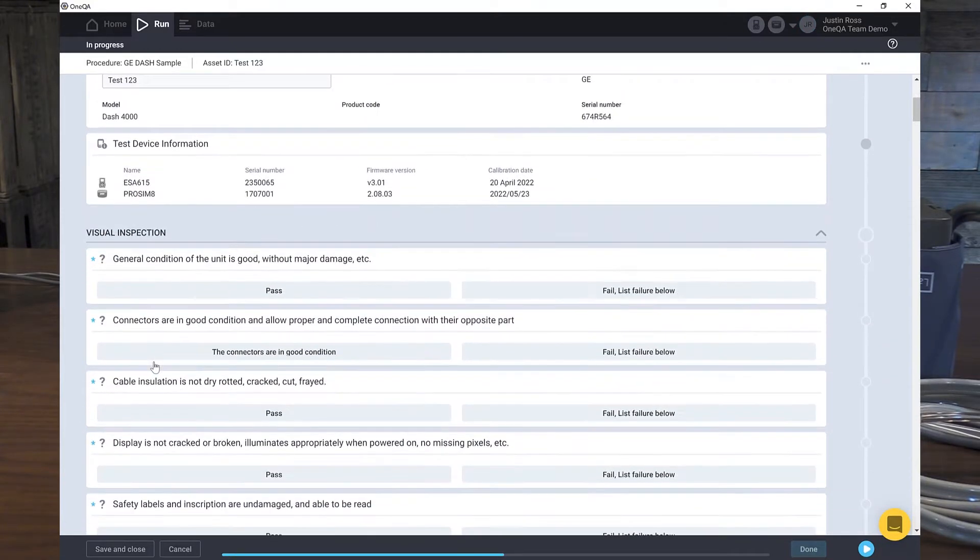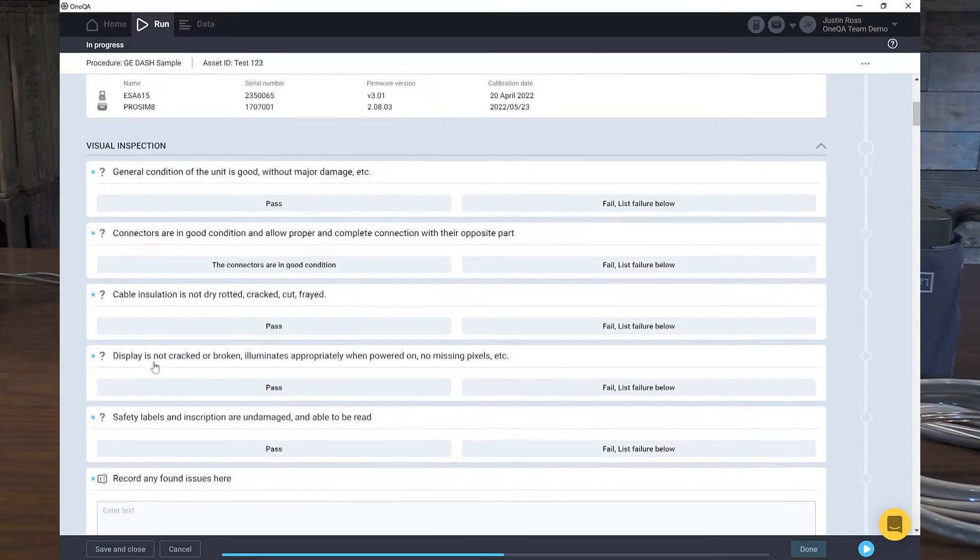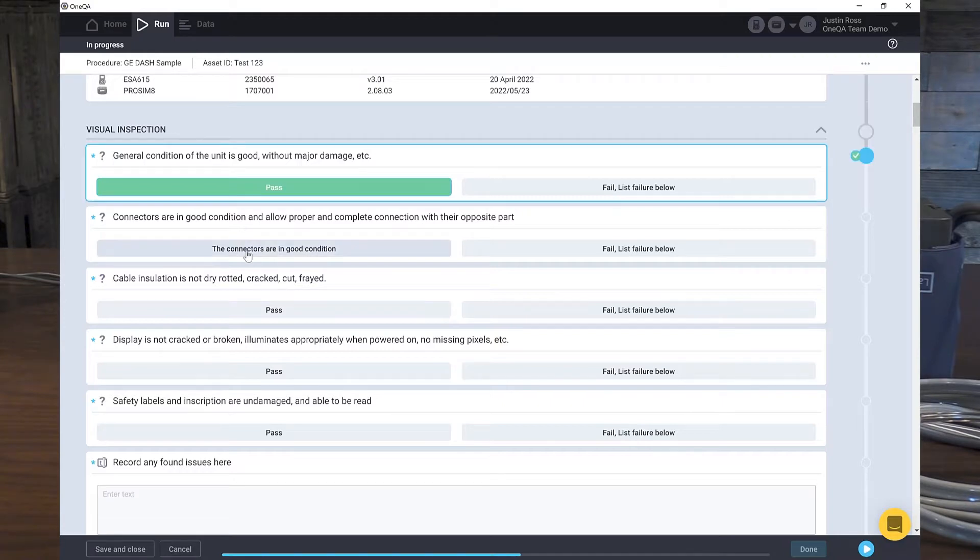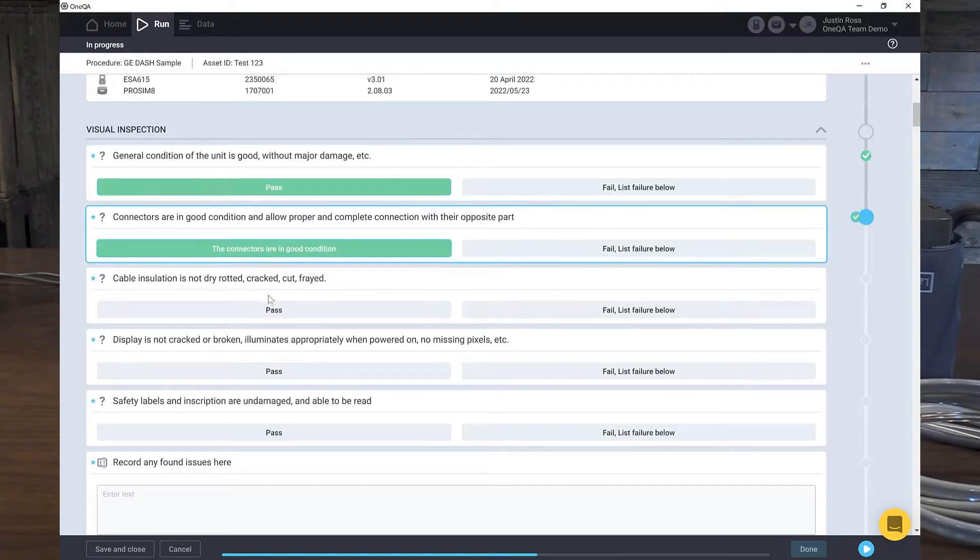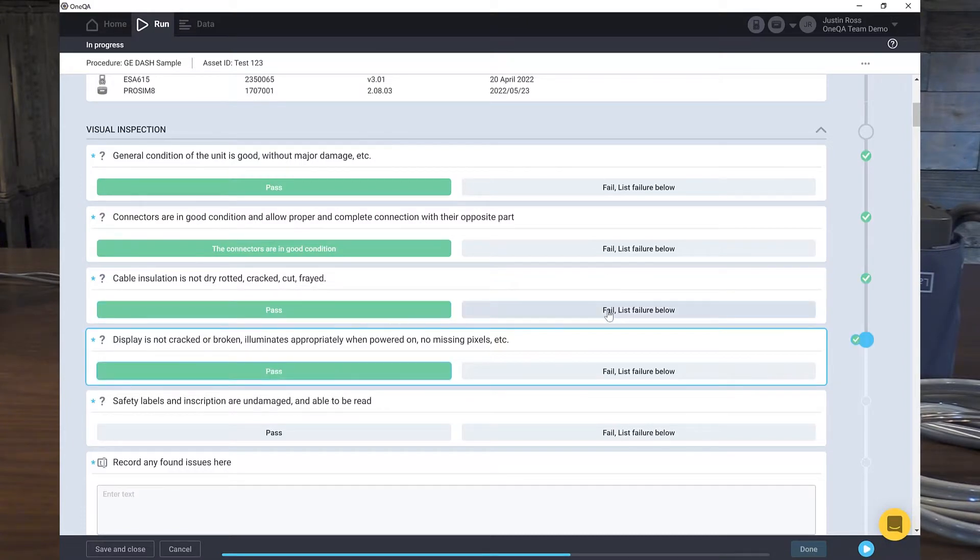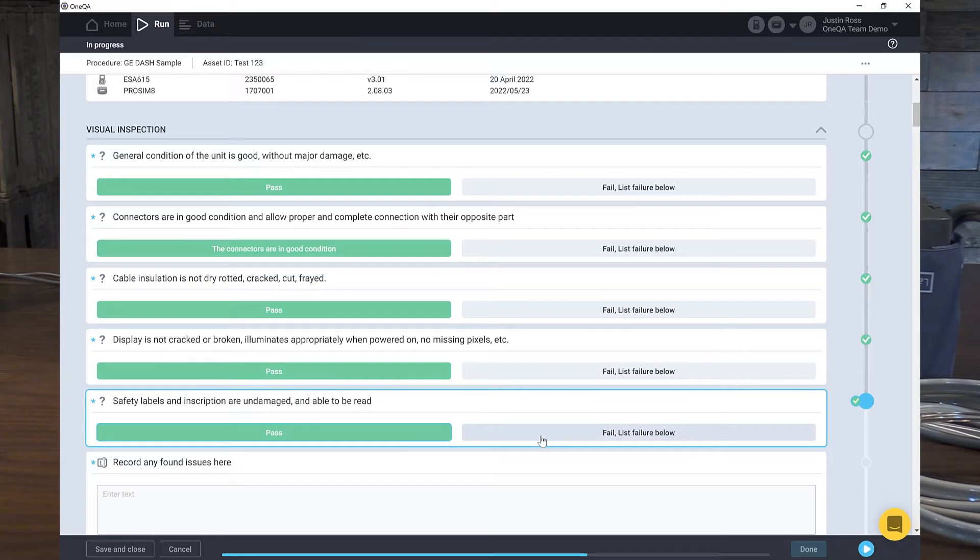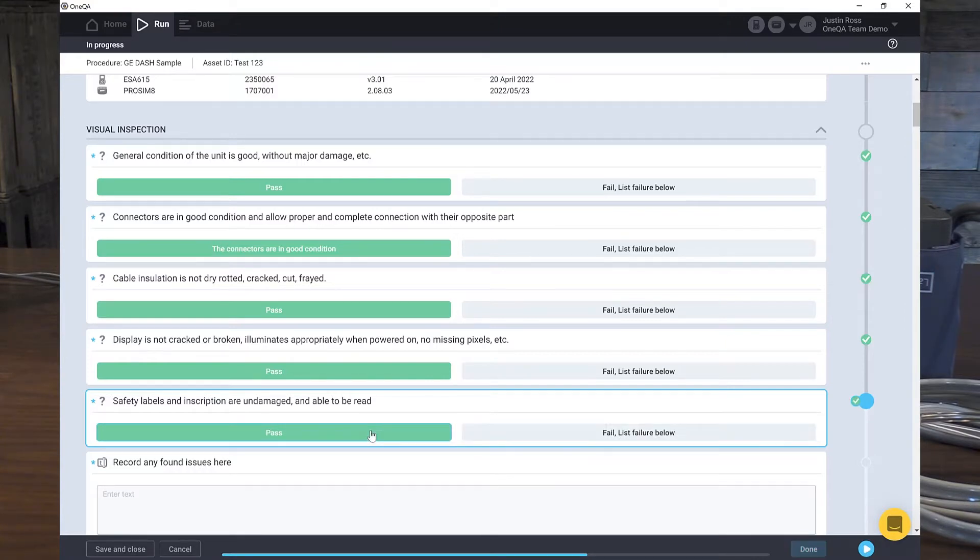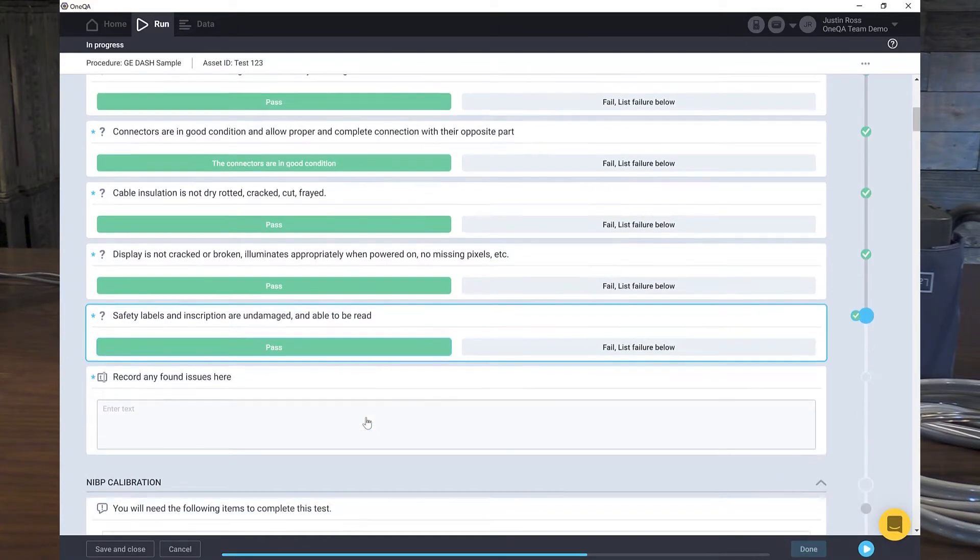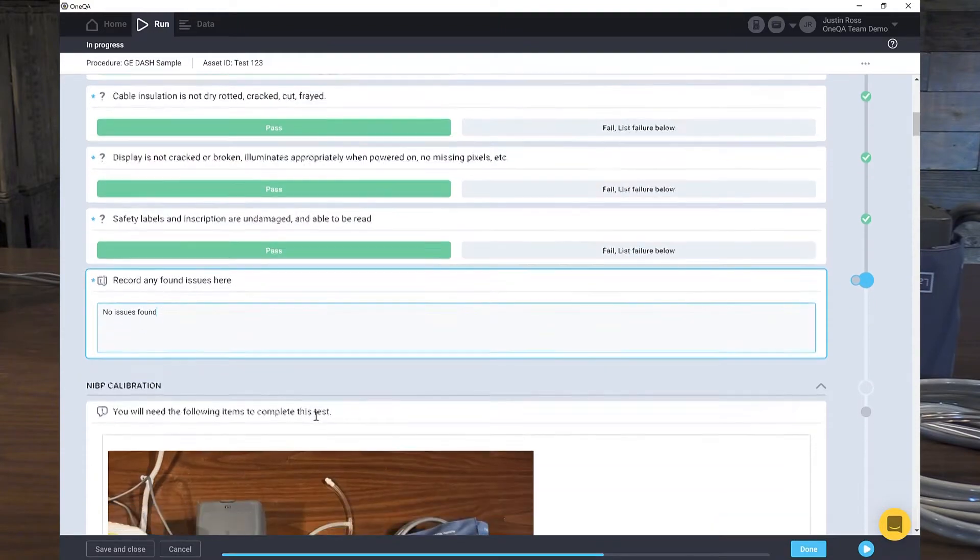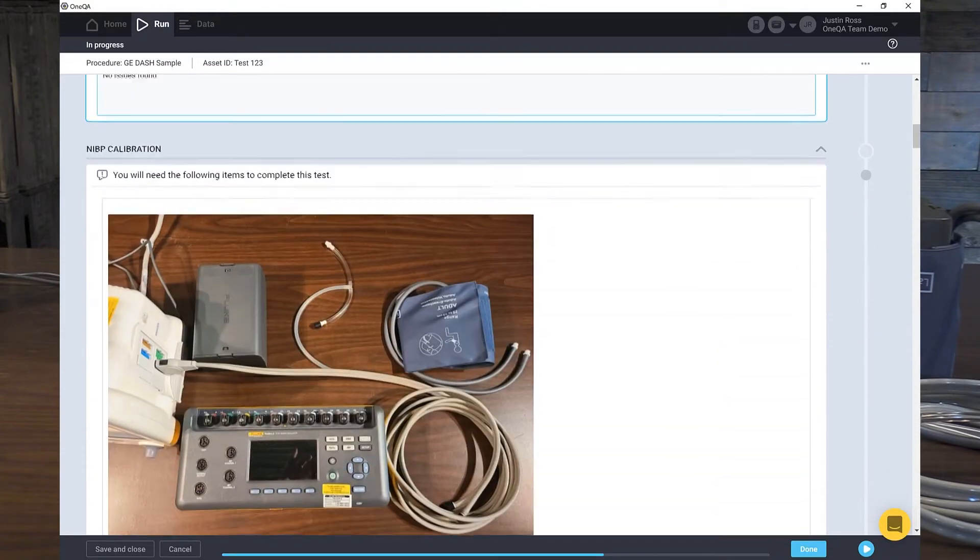Moving down, let's start the visual inspection. So we can go through and follow the simple instructions and read them and select the appropriate answer. And you can notice that we don't just have pass and fail. We took things like it says if it fails, list below, list the failure below. Well, let's mark these all pass. Oh, maybe this one is a fail. Let's see what happens. So if we fail something, we get a red X. So we either annotate this or correct the failure, which it takes we can mark pass then. And we'll write down here in the box, no issues found. All right.